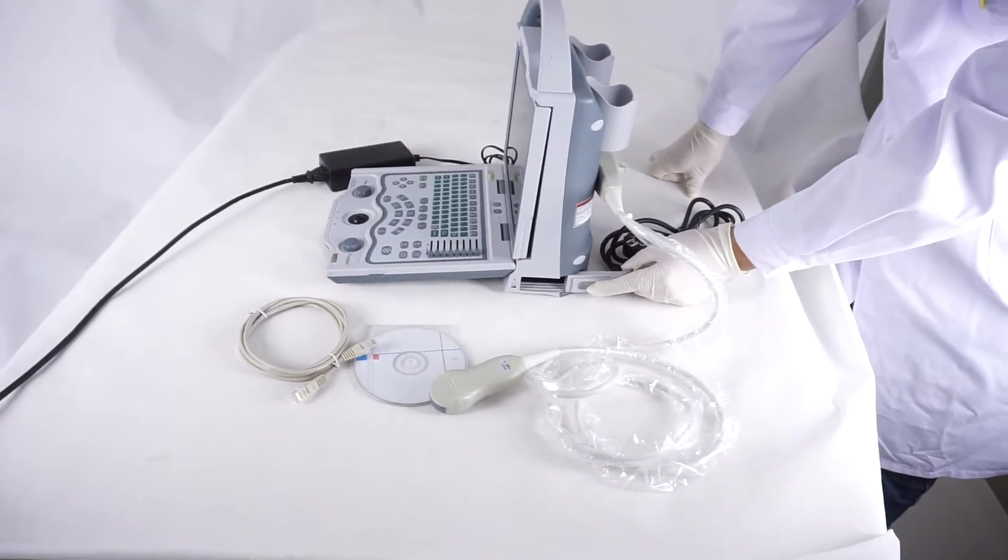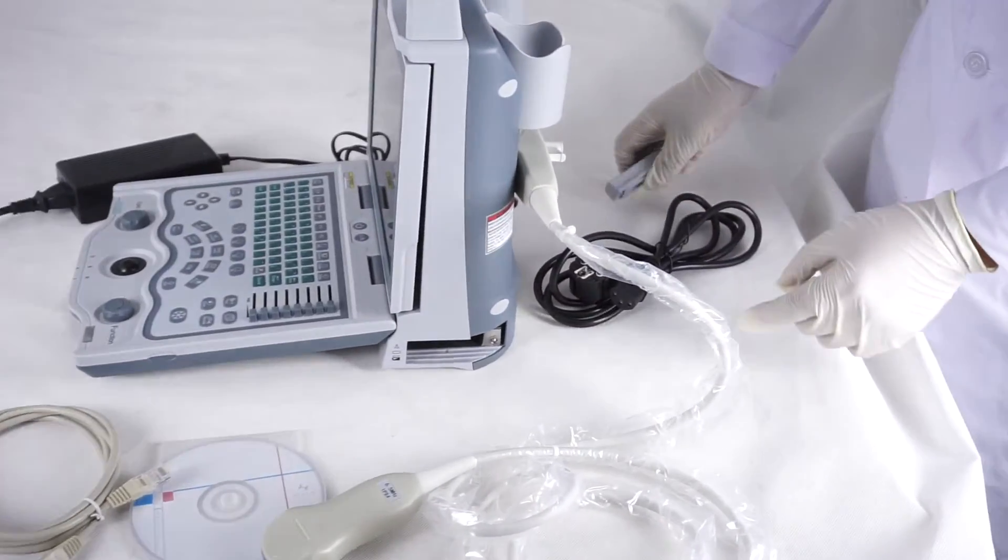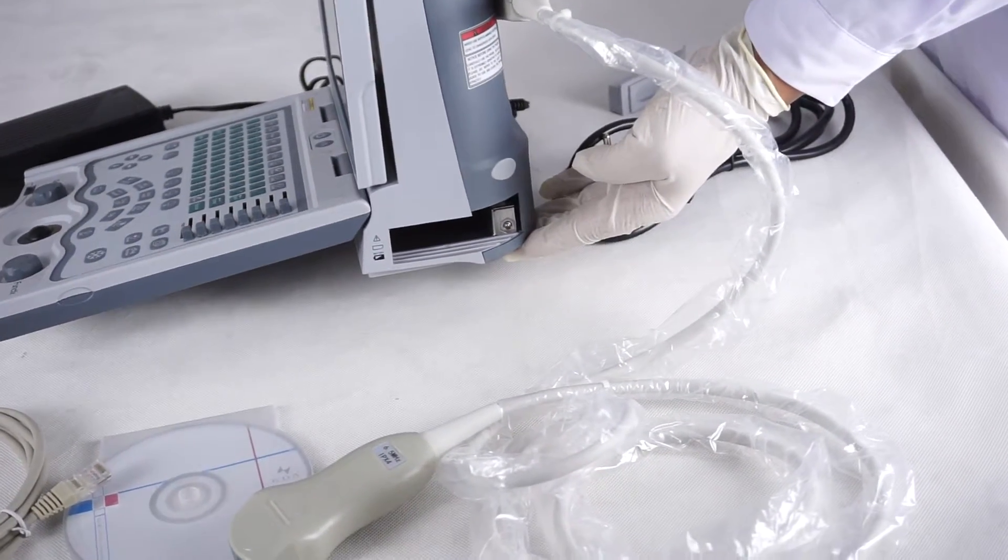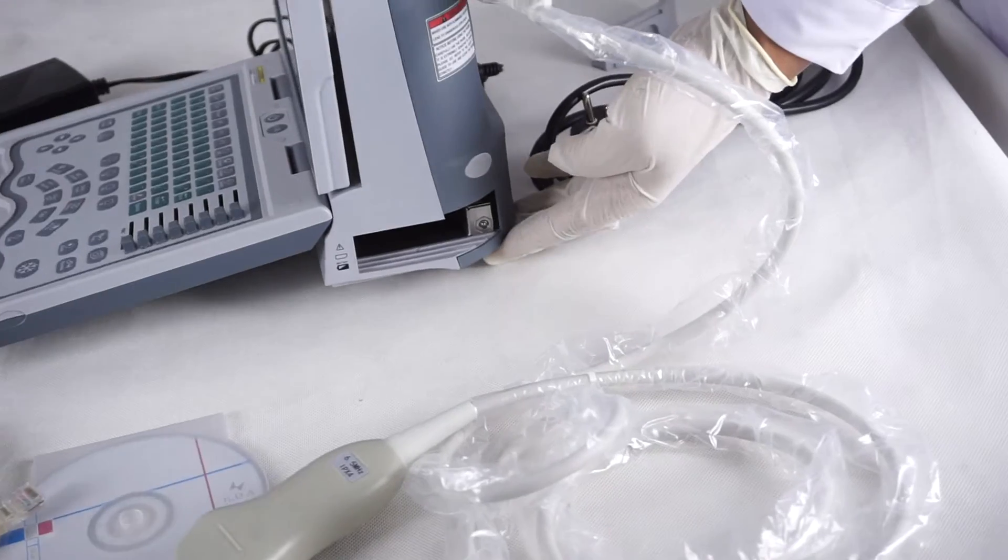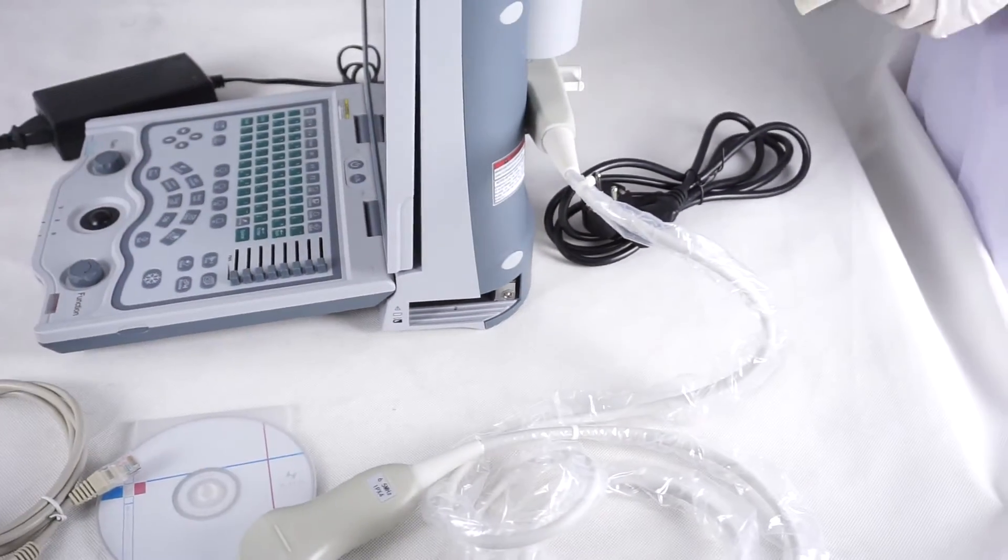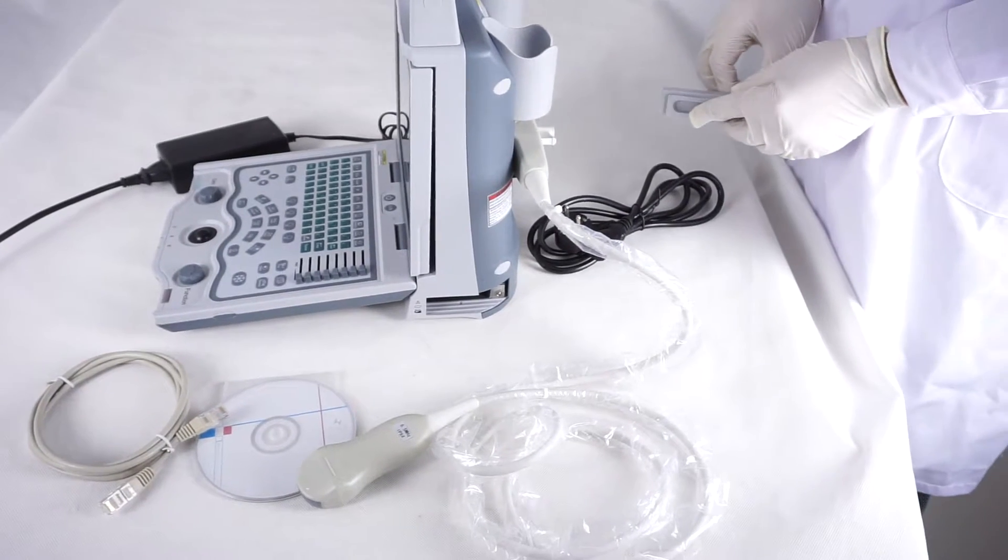And the battery is also optional. With the battery, you can use the machine about 200 minutes. We suggest to include the battery together.